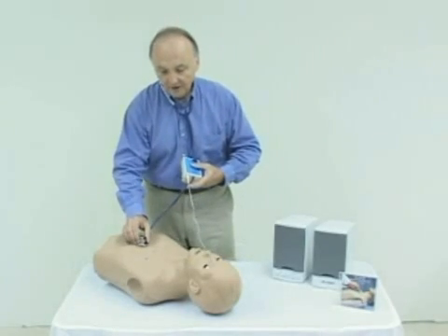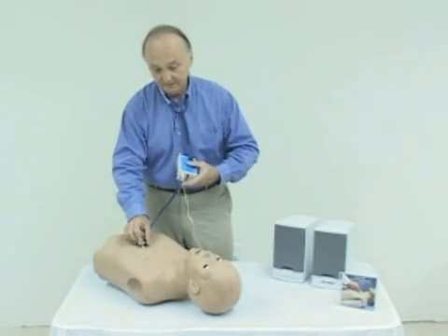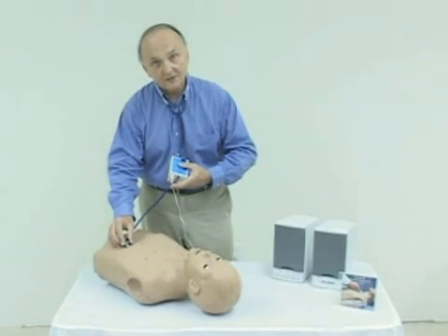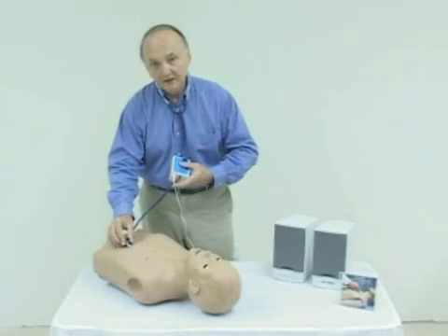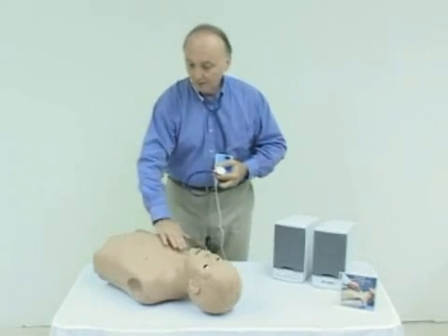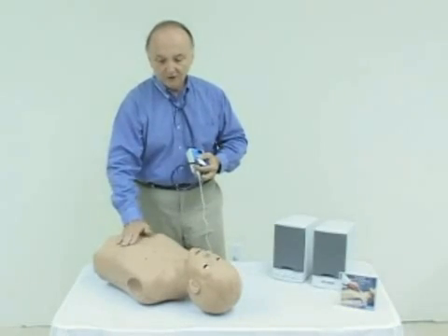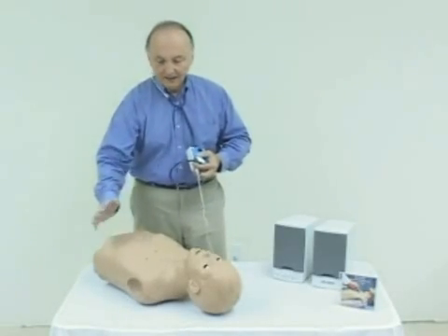Similarly, all of the heart sounds are possible. Right now I'm doing an LLSB. I can move that around to other points and get a similar sound. Here we're listening to a sound at the apex — a rather normal apex sound. You have some ability to move the stethoscope around, and when you're at the right point you hear the sound. To determine where the right point is: beneath the skin you have a ribcage. You can feel and palpate — get the location relative to the sternum, get the location relative to the intercostal spaces, and then place the stethoscope.